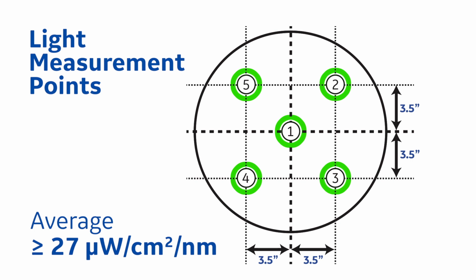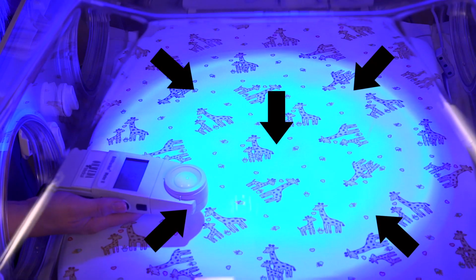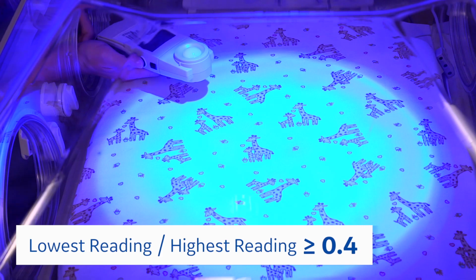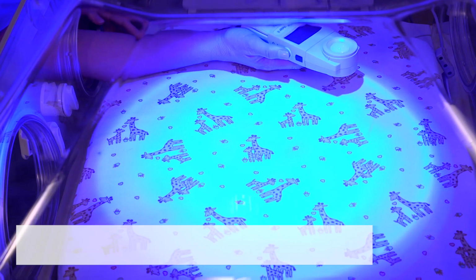If not, have your biomed take a look at it to see if the LED bulb or something else needs to be replaced. Divide the lowest reading by the highest reading. If the LED light is functioning properly, the result should be greater than 0.4. If the result is not greater than 0.4, contact service.